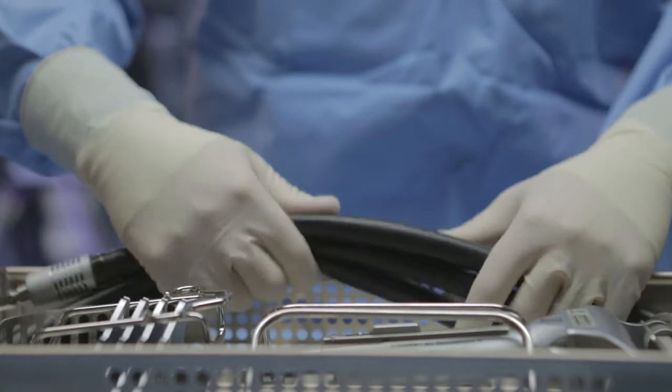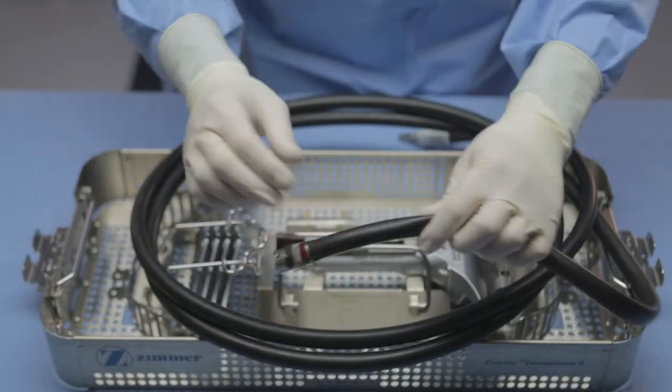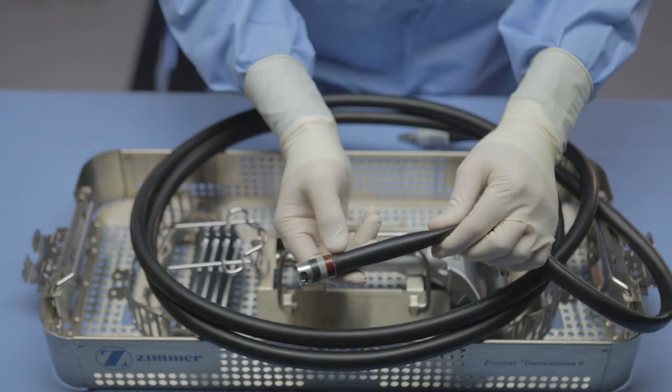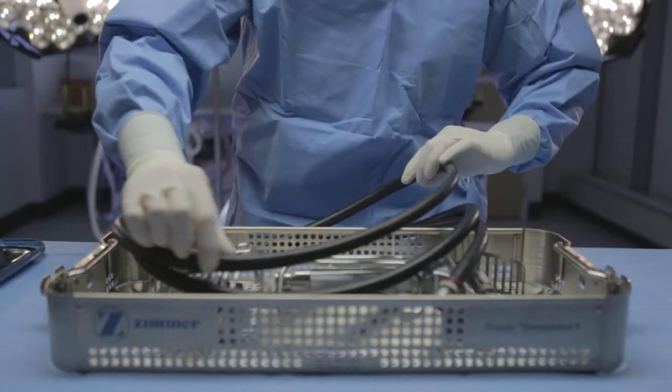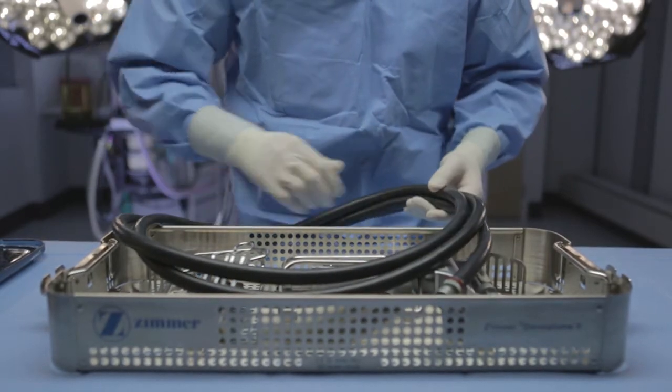Always inspect the hoses for signs of wear or damage. Never use a worn or damaged hose. Under pressure, a severed or broken hose can whip out of control. Replace the hose immediately if it becomes worn or damaged.